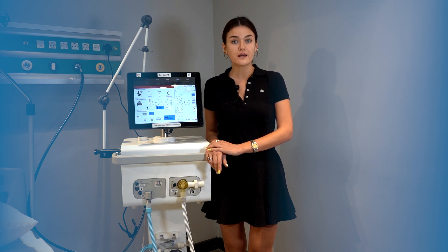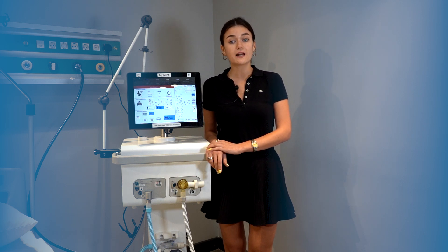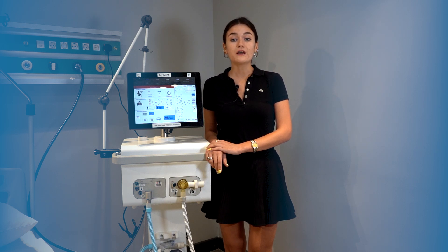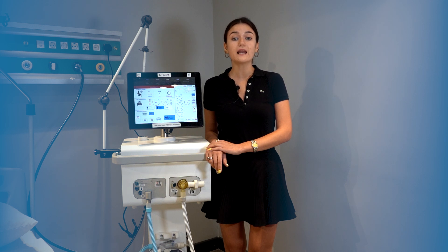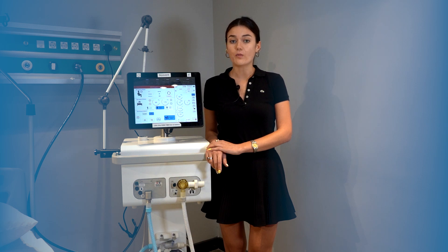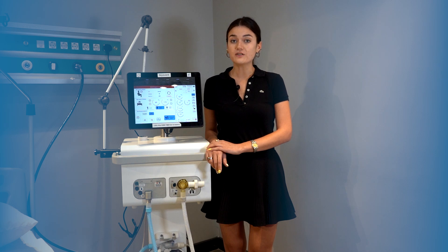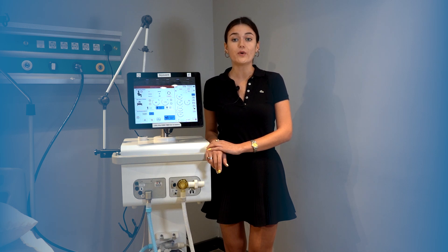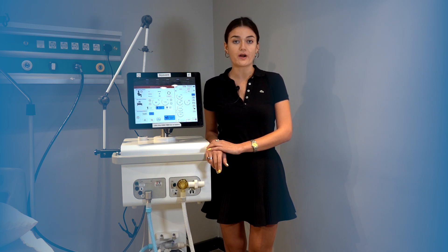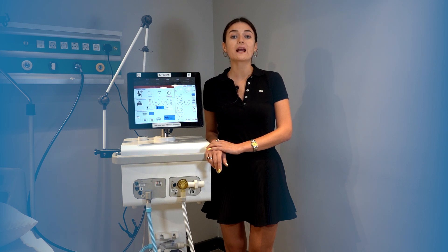During the use of spontaneous modes, the patient's respiratory workload is more significant than the mechanical ventilator. In all spontaneous modes, the patient's breathing effort is supported by the mechanical ventilator to varying degrees. Spontaneous modes are used for patients who are spontaneously breathing. The patient's breath can be supported by the ventilator at a set pressure or volume, but there is no mandatory machine breath. These modes are commonly used for weaning from mechanical ventilation.